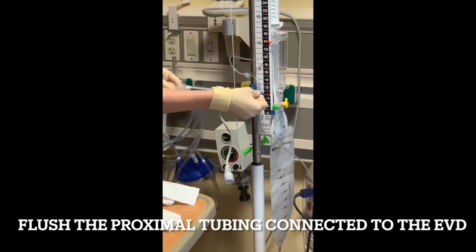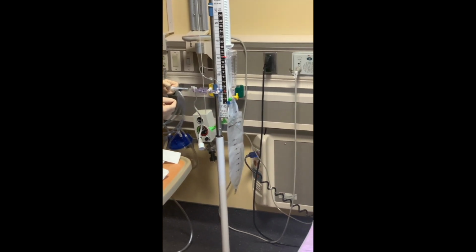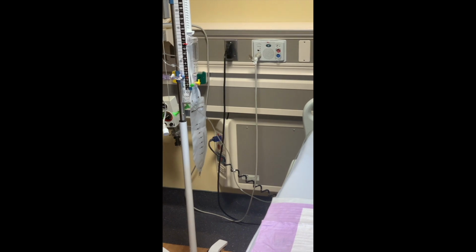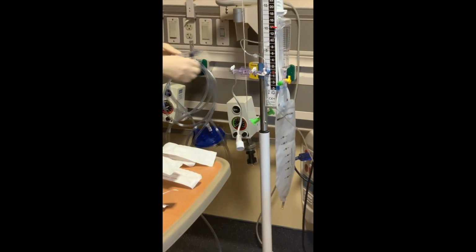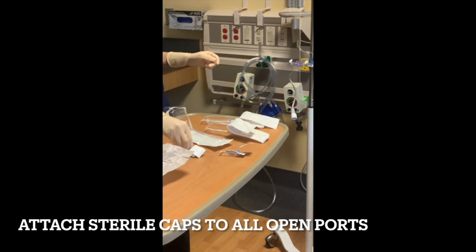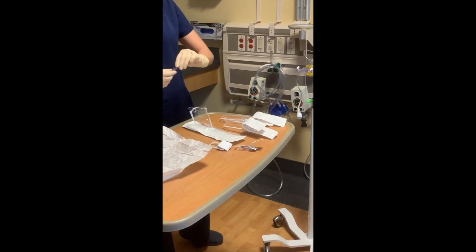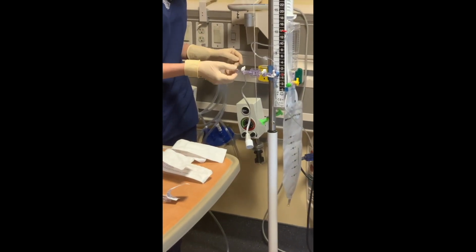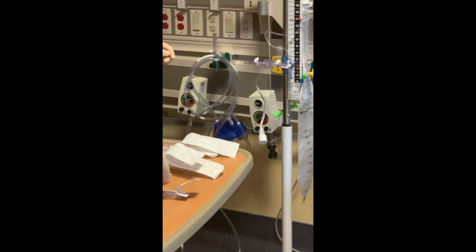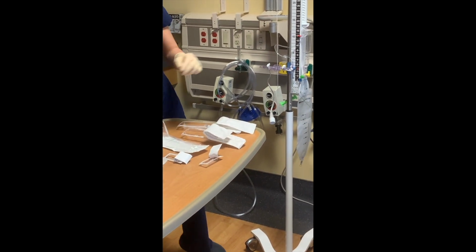Once this is tightened, open the stopcock and flush the distal tubing and collecting system with sterile preservative-free saline. Once this is done, turn the stopcock labeled number 4 in the previous tile to the 12 o'clock position. This will allow for flushing the tubing that's directly connected to the EVD. Then grab all your sterile caps from their sterile packaging and cap all of the open ports on the stopcocks within the collecting system.